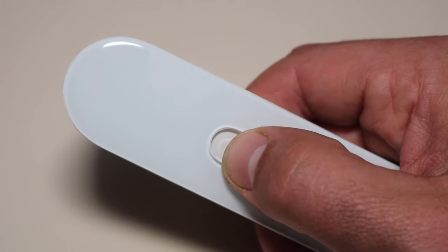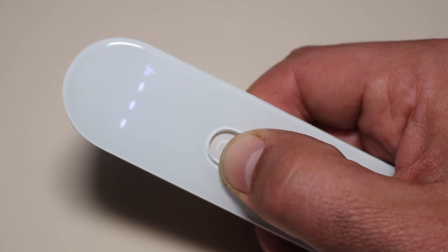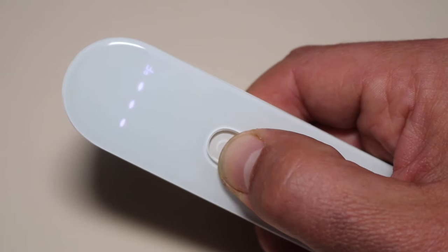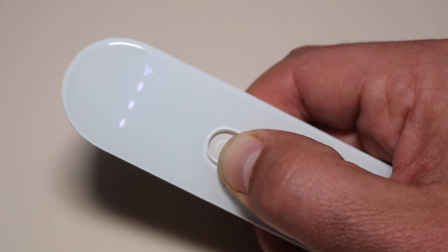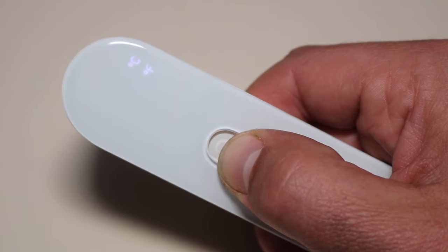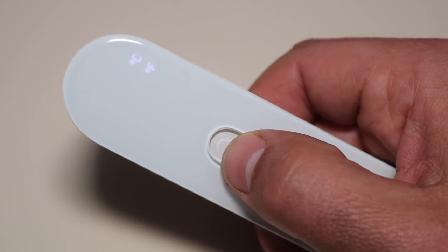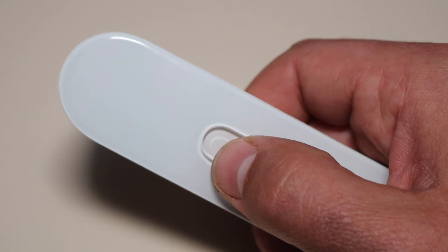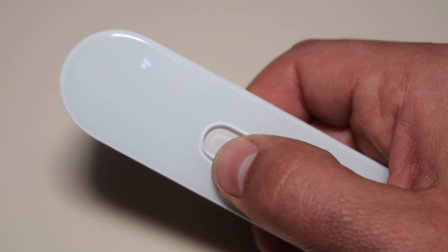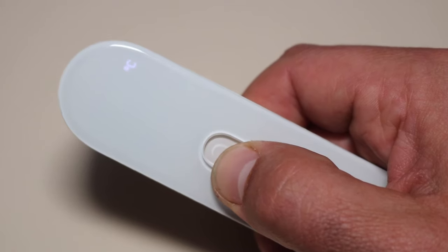So what you do is you hold down for eight seconds, then it will give you the option of Celsius or Fahrenheit. Select that, and then you long press.